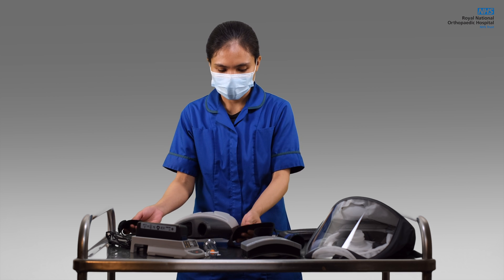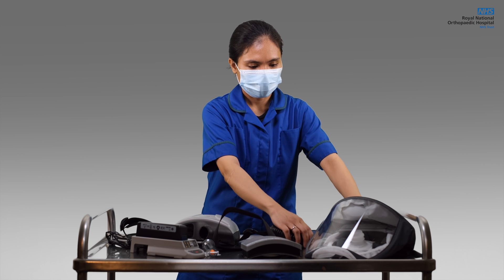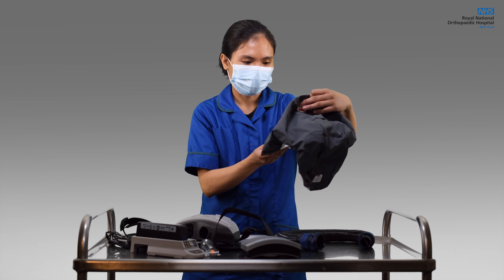Outside the area where a Powered Hood is needed, check the integrity of the whole unit. Perform a visual inspection and functional test.